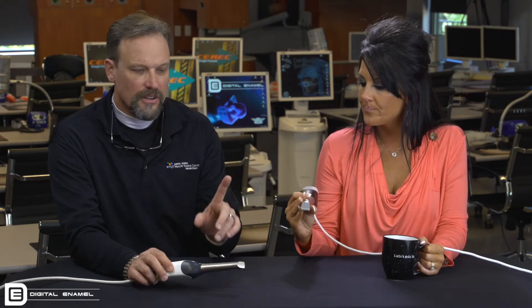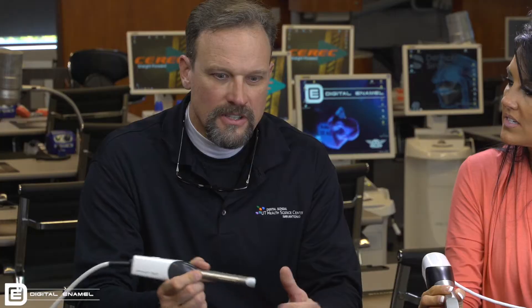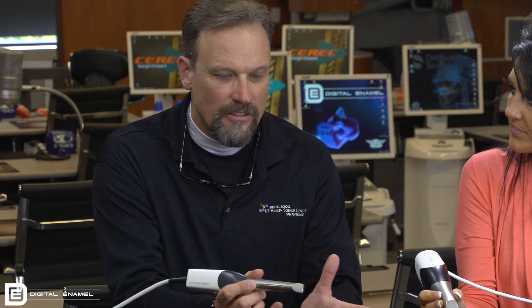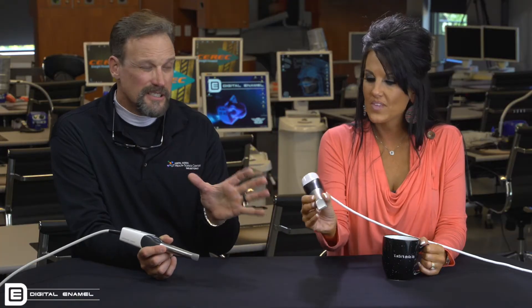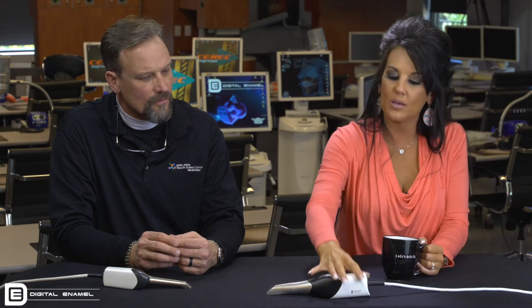Although it's bigger, it can actually see in angles that the Omnicam can't. In our CEREC Straightforward class, we always talk about 90 degrees — when you're using the Omnicam, you really have to get 90 degrees to the surface for it to image really well. The PrimeScan is more like 60 degrees. It sees so much and it really is faster — partly because of how much it sees, but you can just image a lot faster with the PrimeScan.